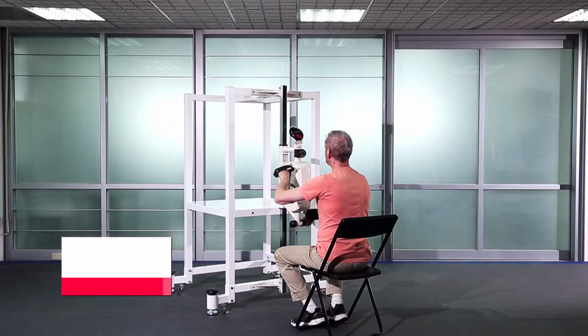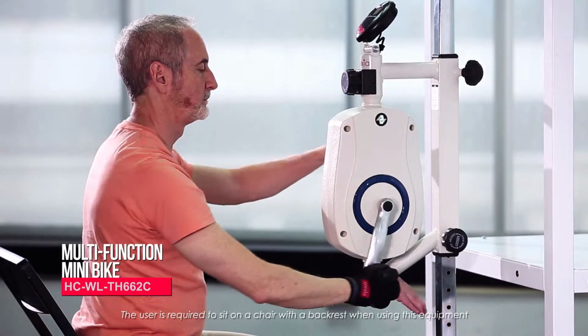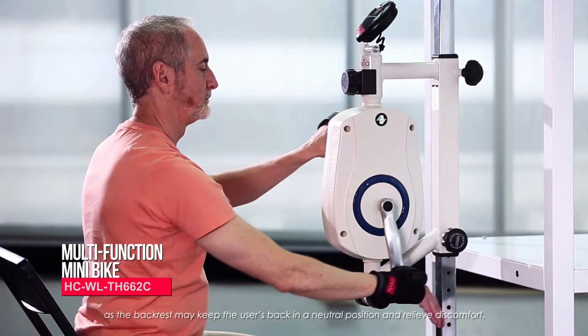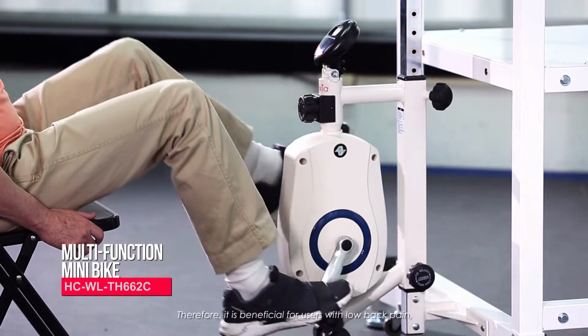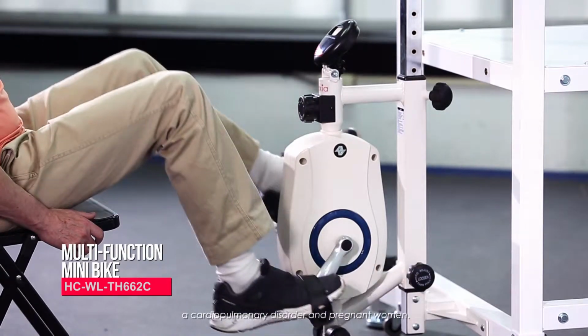Multifunction mini bike. The user is required to sit on a chair with a backrest when using this equipment, as the backrest may keep the user's back in a neutral position and relieve discomfort. Therefore, it is beneficial for users with low back pain, a cardiopulmonary disorder, and pregnant women.